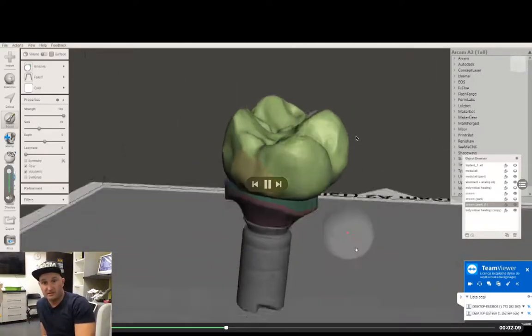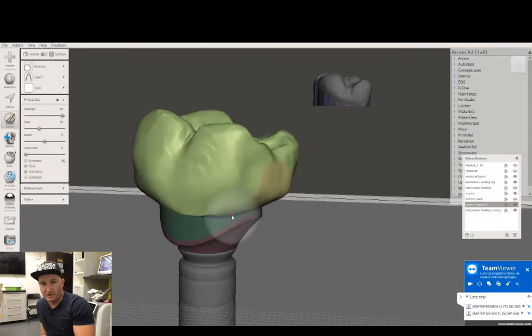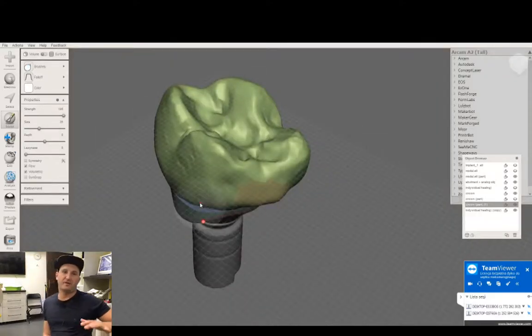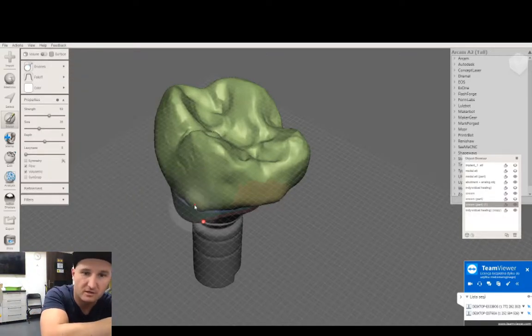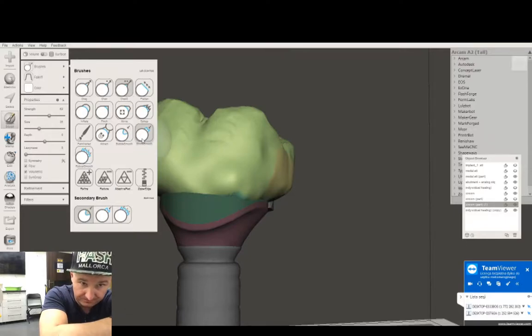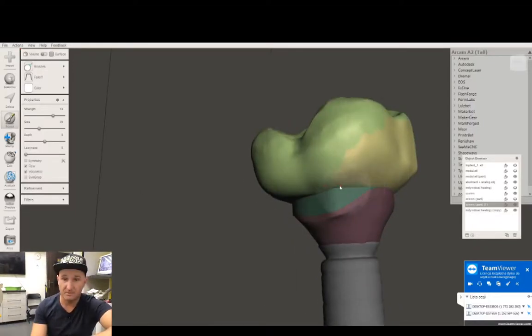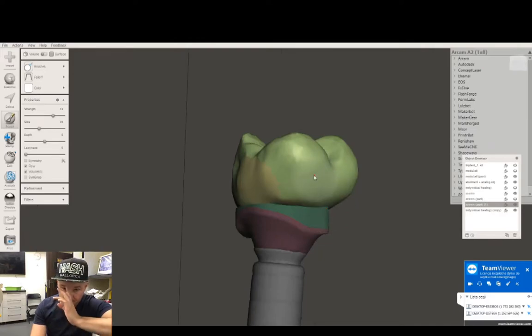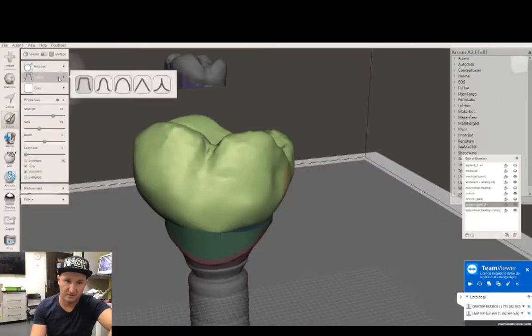We've got our first version of the screw-retained implant crown. If we do something wrong we can go back and start over, as you can see here. With the sculpt brush - using the draw function, smooth function - I adjust it to look as good as possible. Maybe not perfect, but since this is just an immediate crown, it doesn't matter so much. All the mistakes I try to correct.